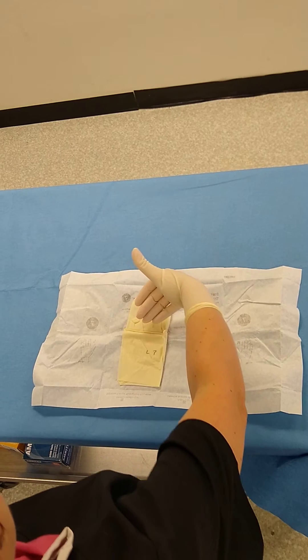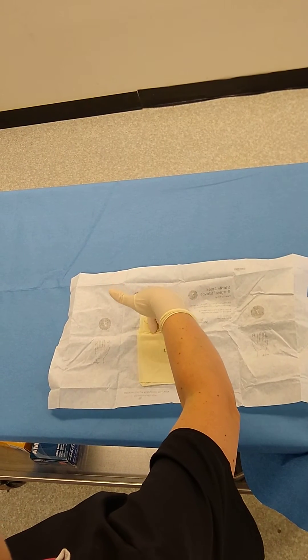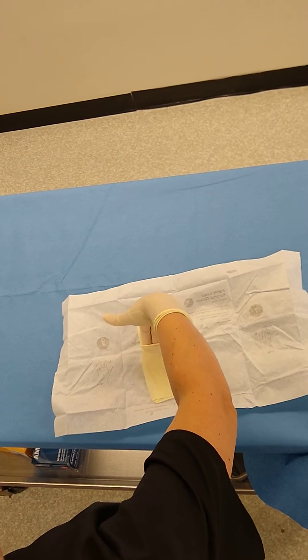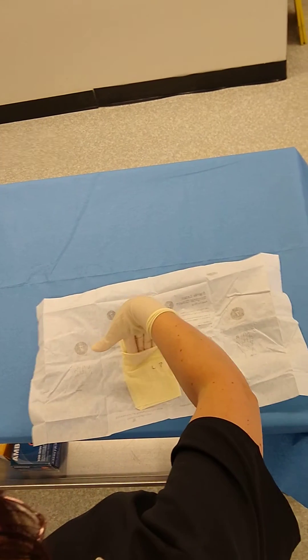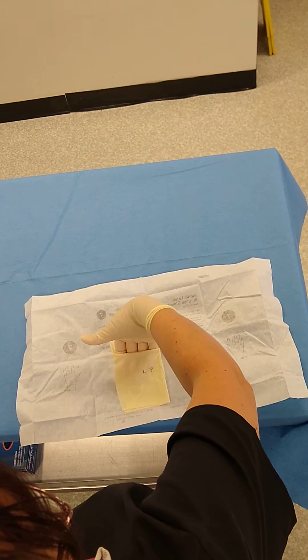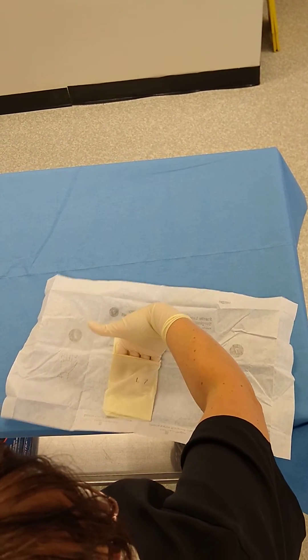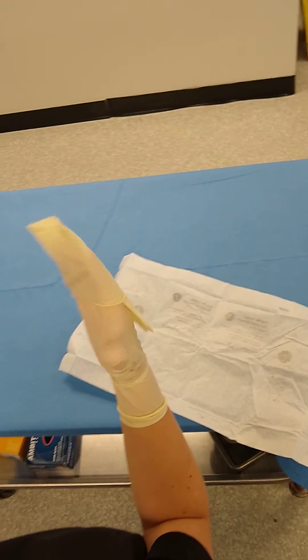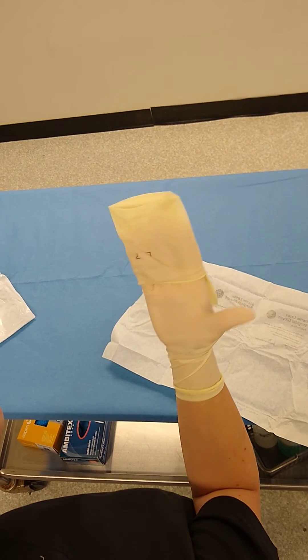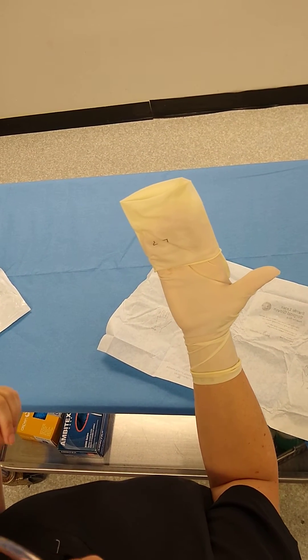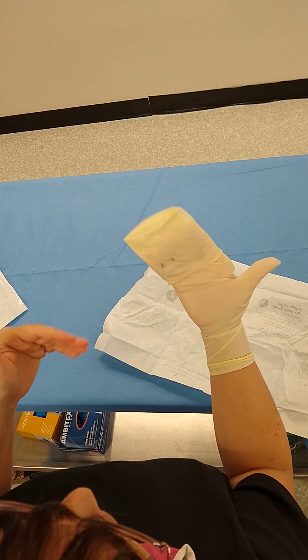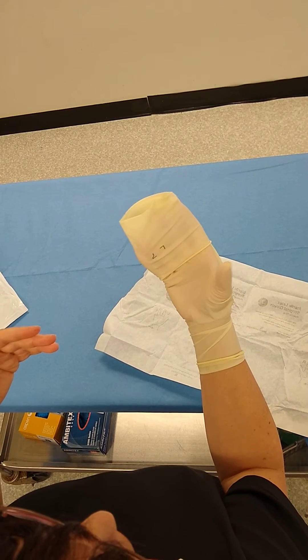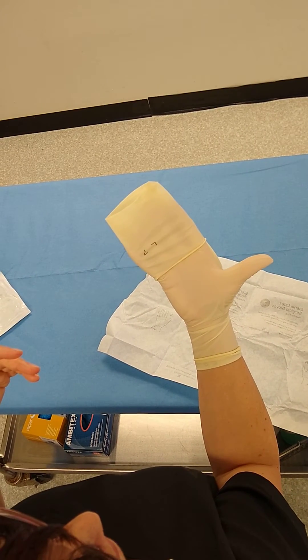Now for this one, you're going to line up your hand in the sterile part because you can't touch the inside edge of your glove. See how you kind of walk your fingers in there? I'm trying to exaggerate it a little bit so you can see better. Pick up your glove and see how it fits on my hand like a pocket. When you're actually doing this, you're not going to flip your hand around—I just wanted you to see. Make sure you don't bring your glove down to touch. That's a common mistake.